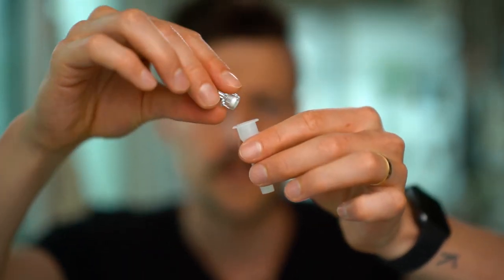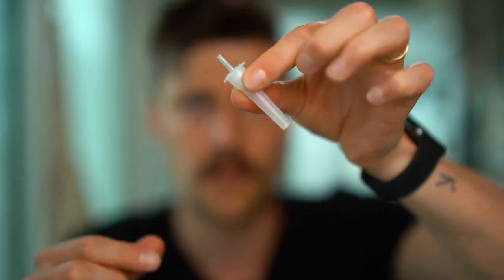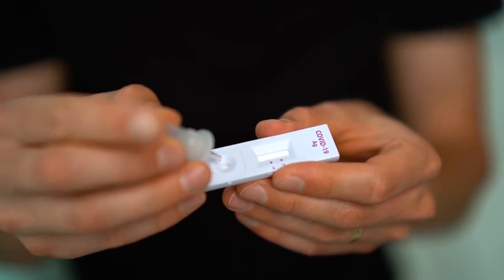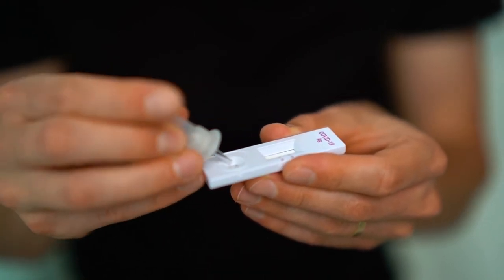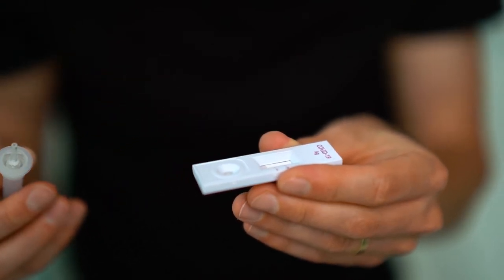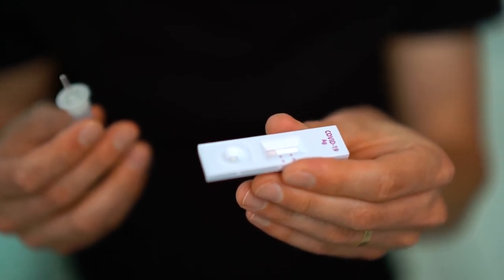Okay, now you put this on top — boom, just like that. And now I just need to put it on this little guy here. Oh gosh, it's seeping. I guess it's supposed to do that.